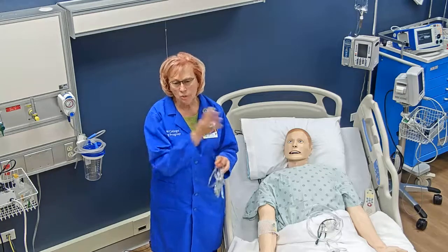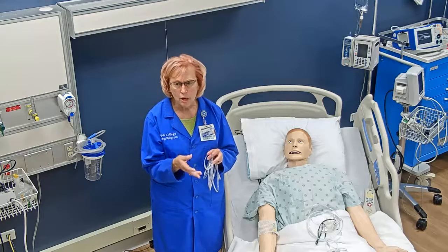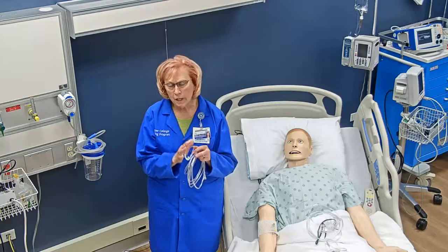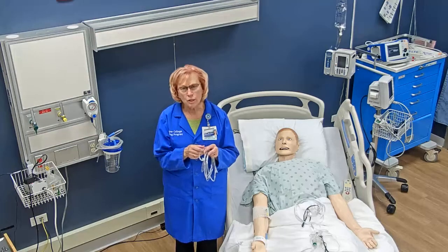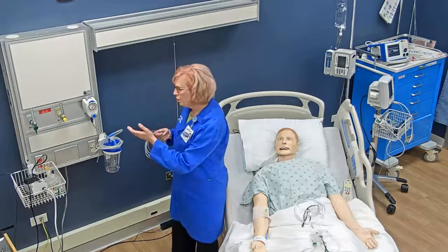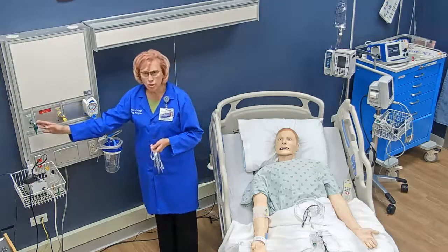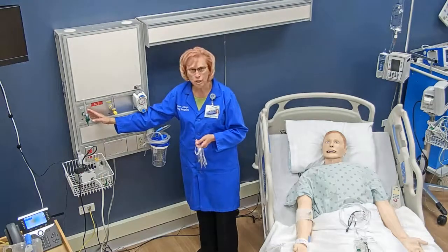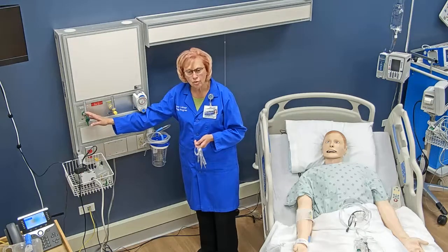The percent oxygen your patient receives depends on whether they breathe through their nose or mouth, and the rate and depth of their respirations. We manage the nasal cannula by using the liter flow, measured in liters per minute. Oxygen flow meters are always green, and they are connected to the oxygen supply at your facility with a green adapter. Oxygen is always green.